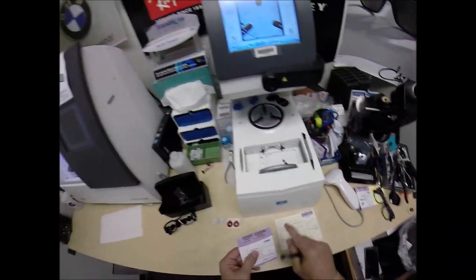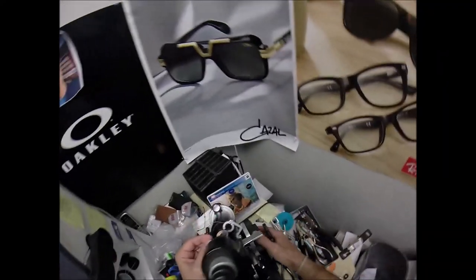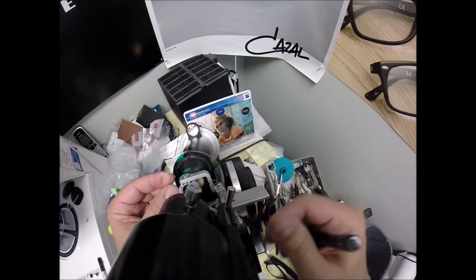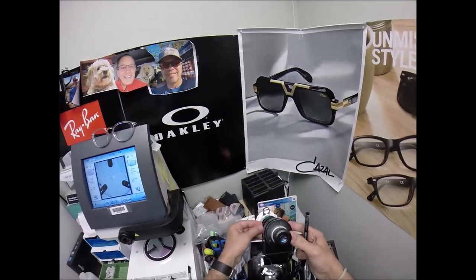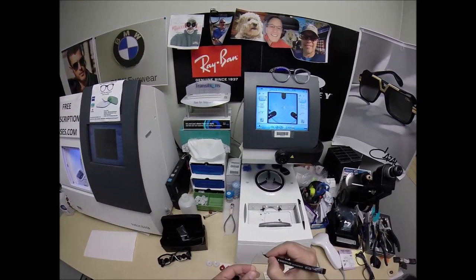Let's do the same thing for the left: plus one sphere. Put the power drum on plus one. I don't have to worry about rotating it — you have no astigmatism correction, so you have the same power all over. I'm only going to put a center dot there. Label this one L.